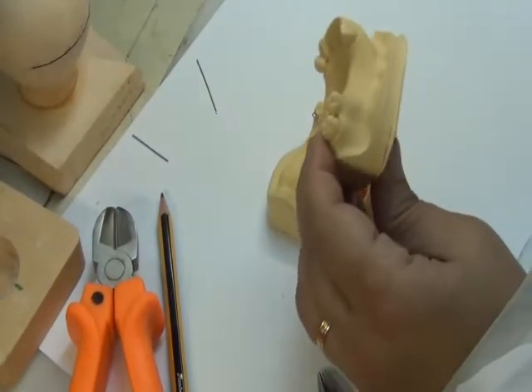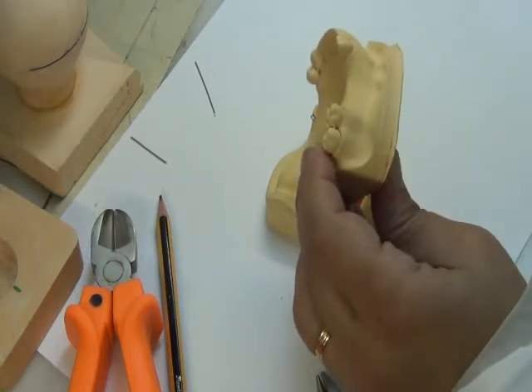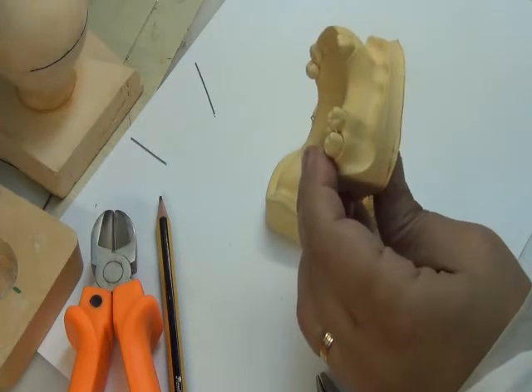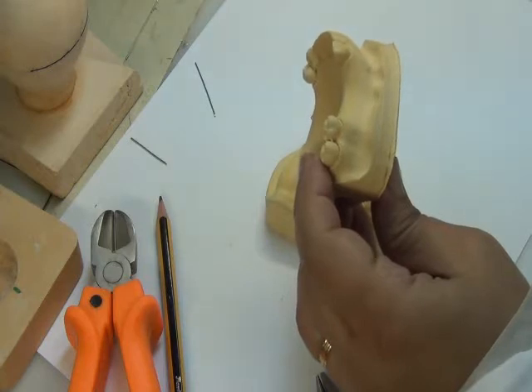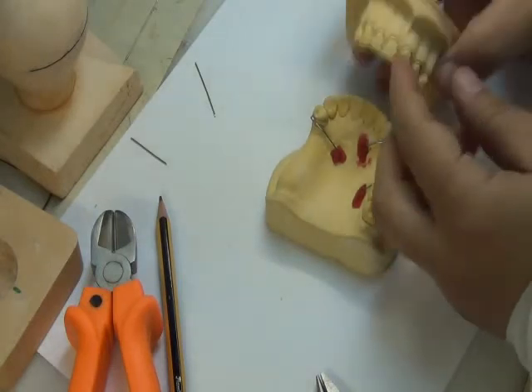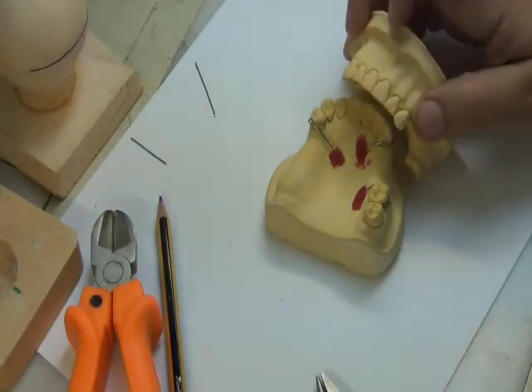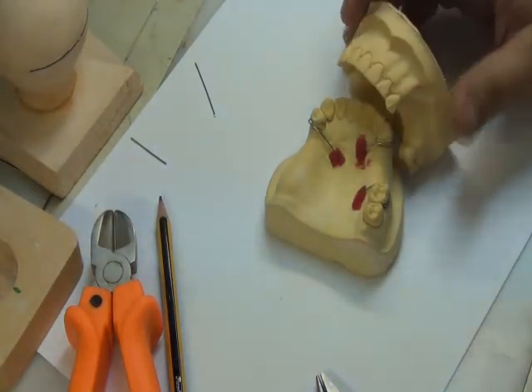when we are using our casts and during the examination of the patient, we need to select the shade and the shape of the teeth. Okay? So the shade, we usually take it with what we call a shade guide, which has multiple shades on it. And we select the shape or the form of the teeth. We can use the cast itself for that. For example, this form, do we consider it tapered, square, oval? What do you consider this type of teeth in terms of overall shape?